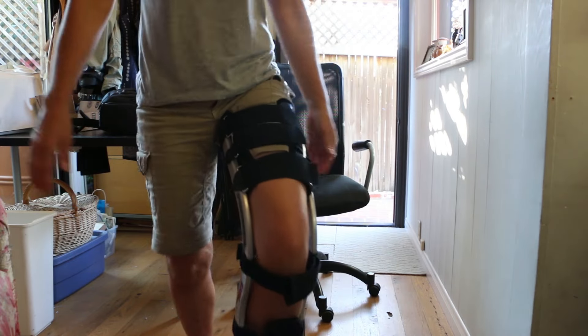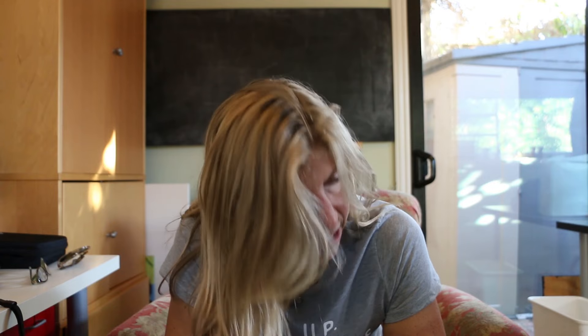So that is my review of the Freedom Leg. It's good, not great, but good. Being non-weight-bearing sucks, so what are you gonna do? It's a good alternative and a good way to give your body a break. The downside is going up and down uneven surfaces or downstairs without a railing — that's pretty scary. Overall it's pretty good. I hope you found this helpful, and whoever's watching, I hope you heal really fast. Take care!